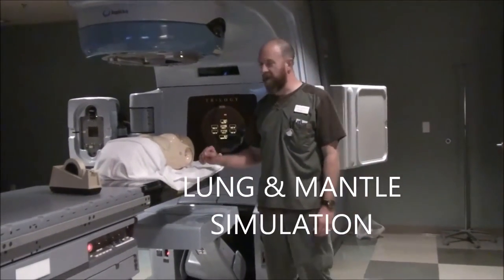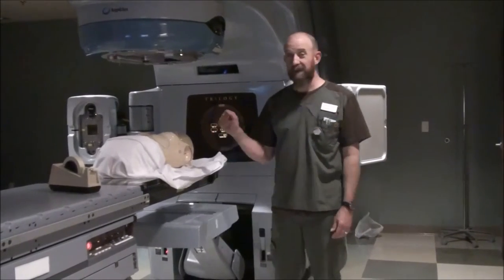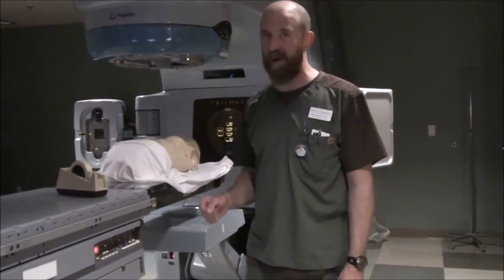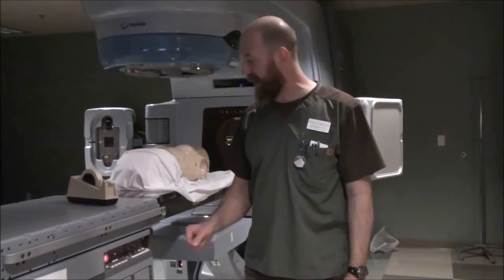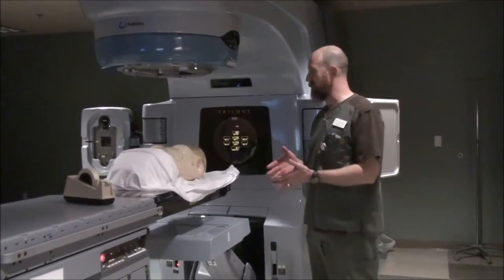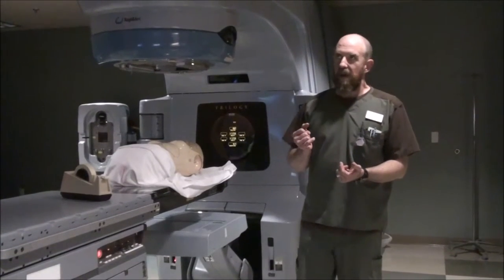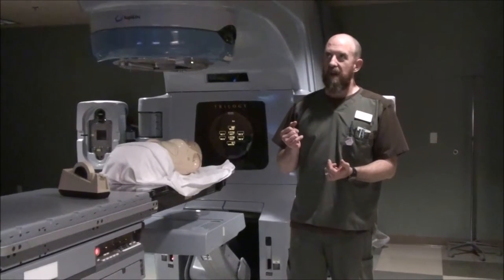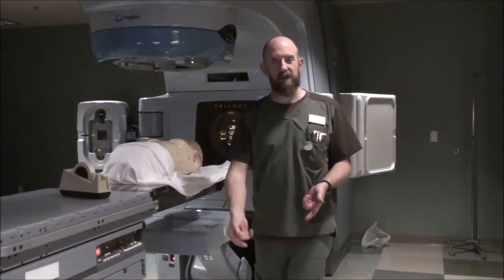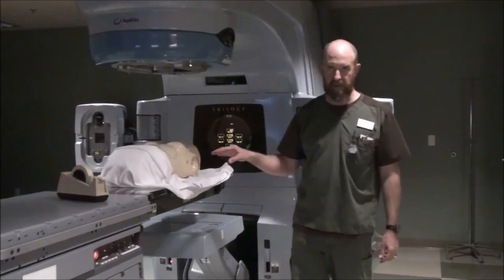This week we're going to go over lung simulation. We're actually going to go over lung and mantle simulation because there are a lot of similarities — kind of pile them in together because of that. I will cover lung simulation first, then go backwards and show you what's different about a mantle simulation.